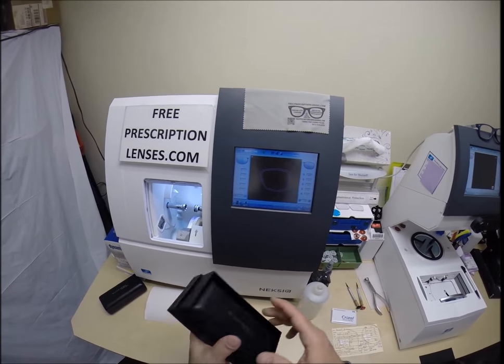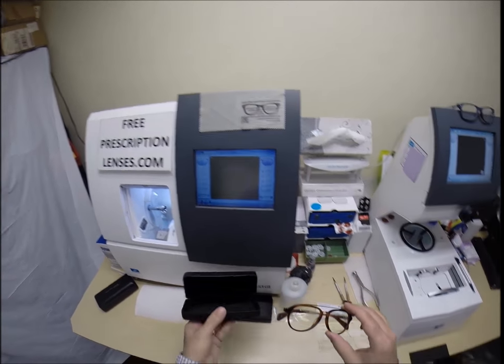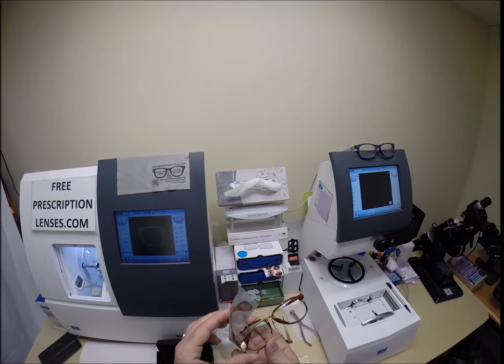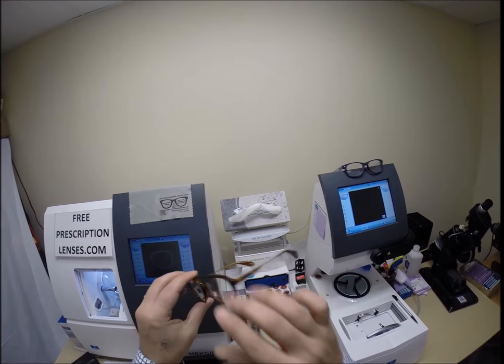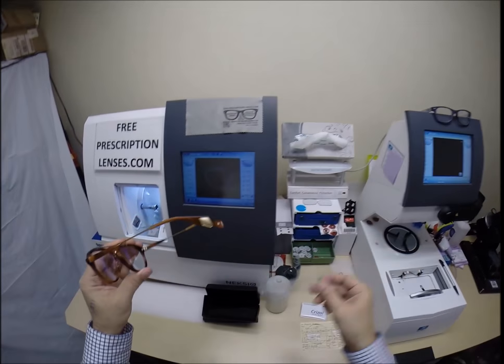This is a great collection of designers out of England. Great classic pieces. It comes with a little plastic sleeve on the left temple to protect the temples from rubbing together from overseas when they ship to me, and I will put the same thing on there when I ship to you.